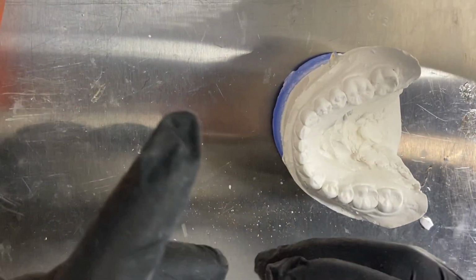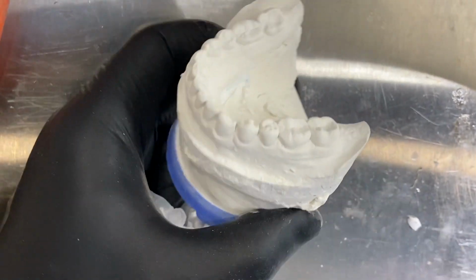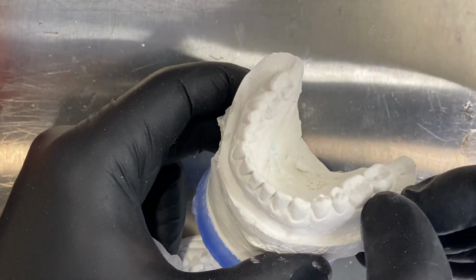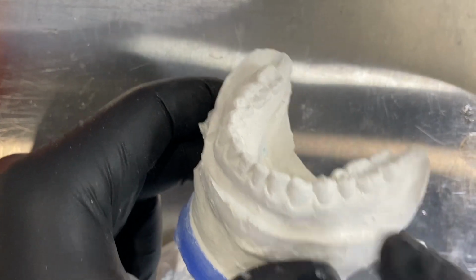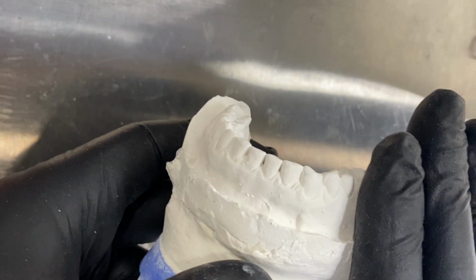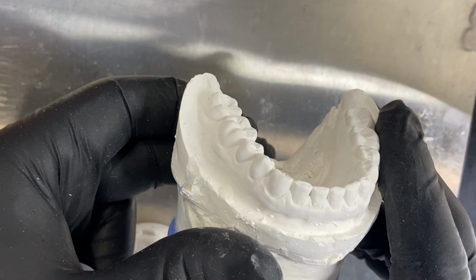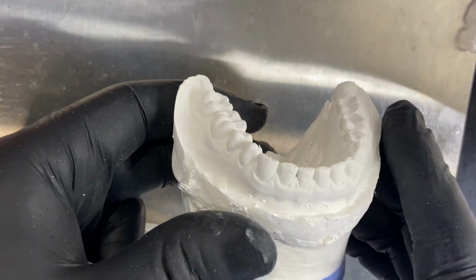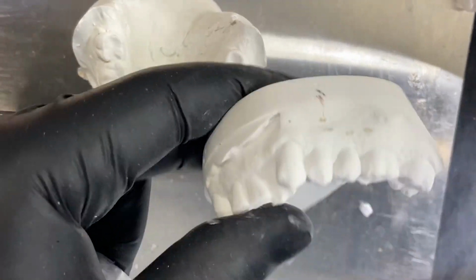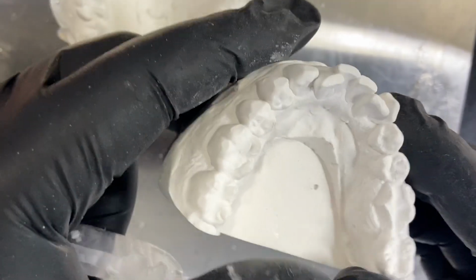The other problem that we have is that in many cases we have a lot of tags because many doctors don't use a wash material, so they use the heavy body, and then we have tags. Those tags are always in the area where we need retention. So in all those cases, if your impression is not good, and eventually you will need an internal reline, nylon is not going to be your option. So my advice is we need to have perfect impressions, like for crown and bridge. We need to have all these internal embrasures properly with no distortions or tags, totally clean.